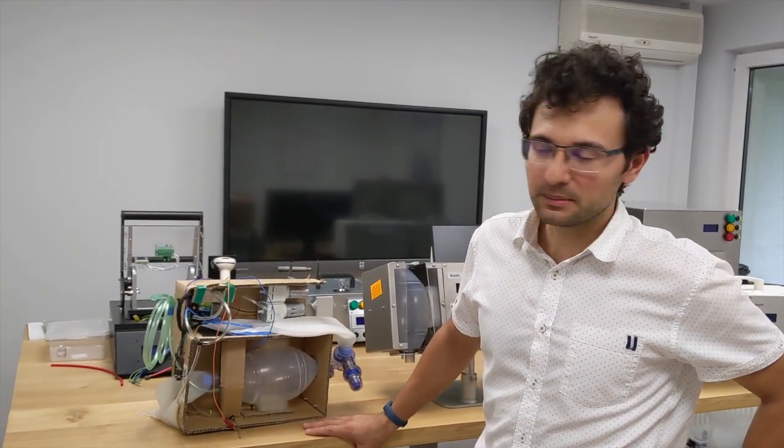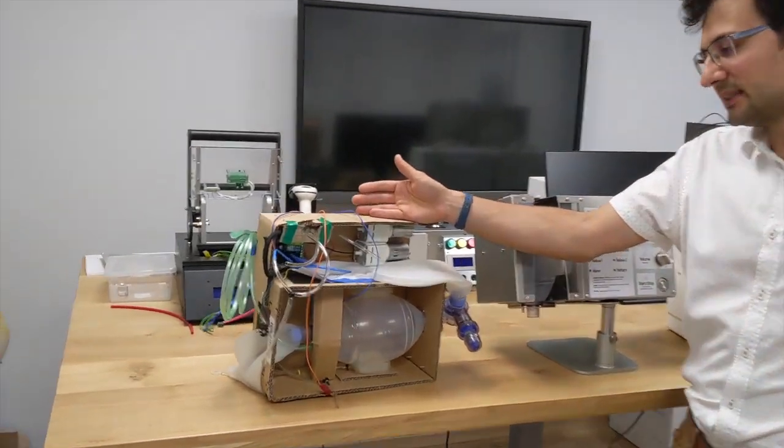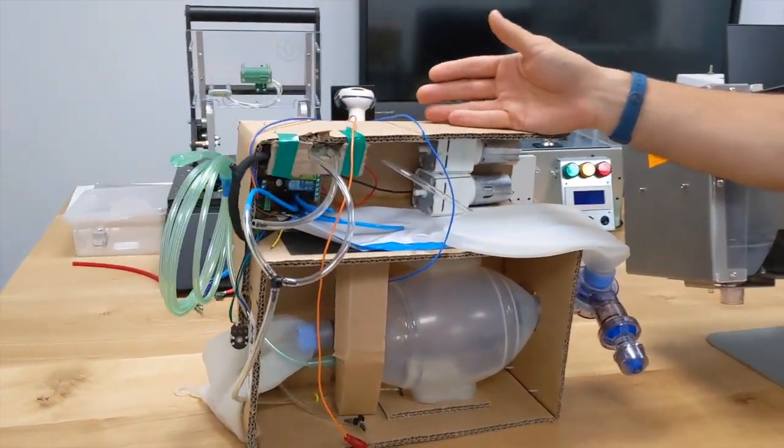Today I'm going to make a quick review of the project. This was the first idea, the concept done in cardboard.